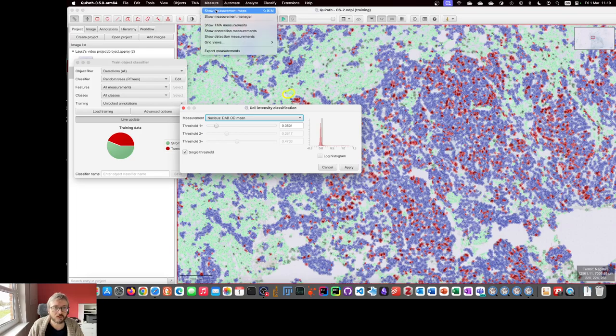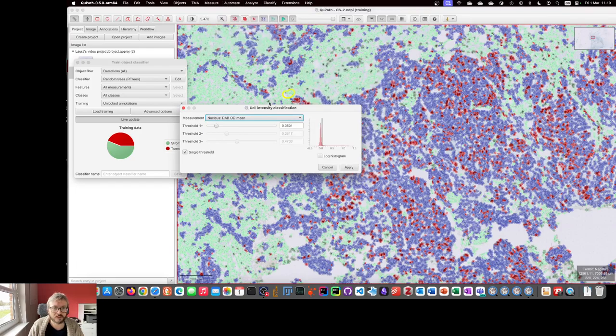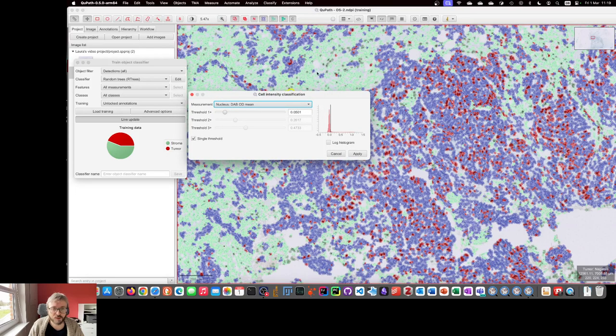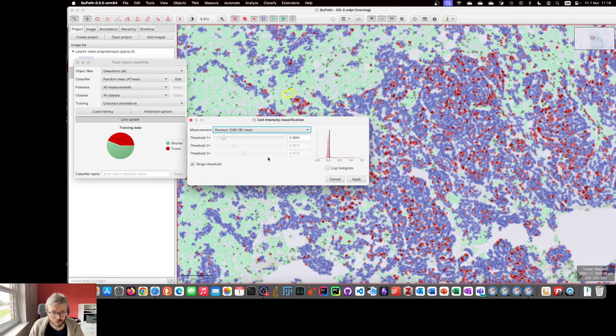I can't actually launch measurement maps, that's a little bit of a surprise to me. But yeah, I can't do normal interaction with other things within the user interface.